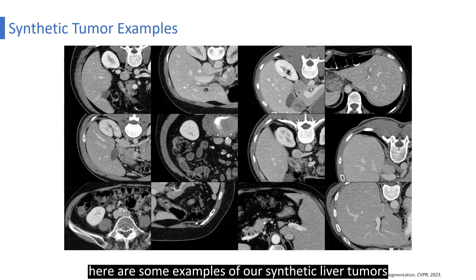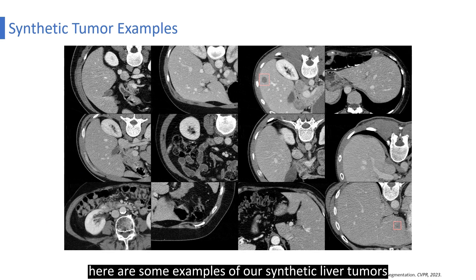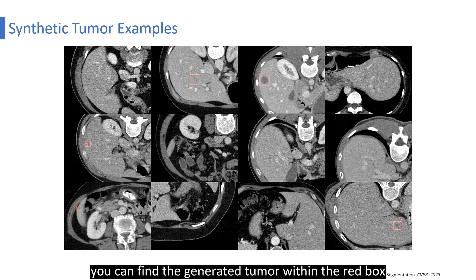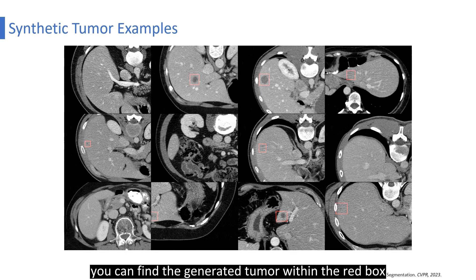Here are some examples of our synthetic liver tumors. You can find the generated tumor within the red box.